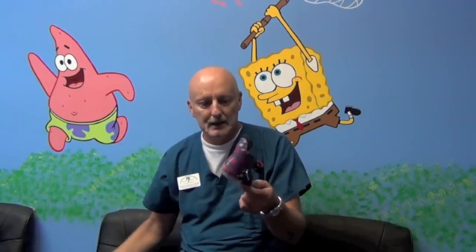If you're a patient, you might ask your orthotist if they'll make this. It's very simple to make — even easier to make than a hinged AFO. It doesn't pay quite as much, but less materials, quicker to make, and very effective. Again, consider using an SMO with a plantar flexion stop for your idiopathic toe walking.